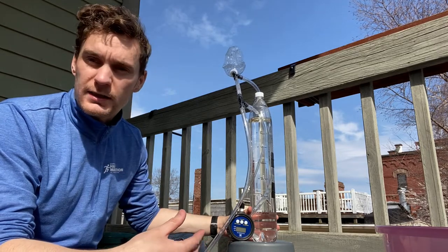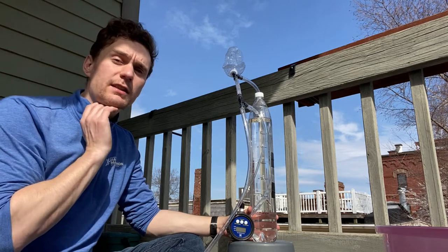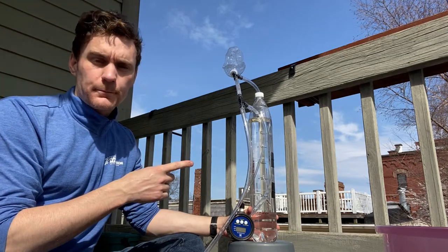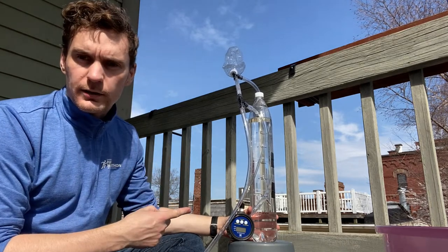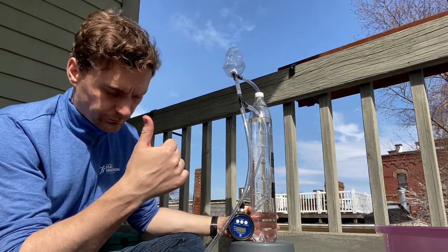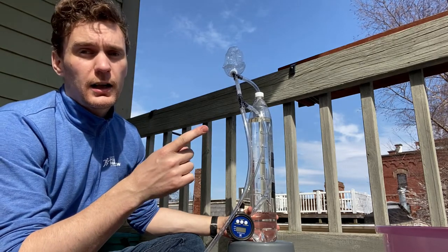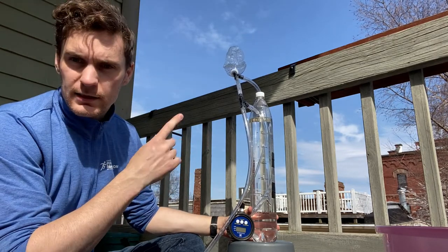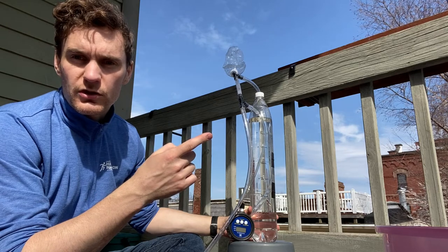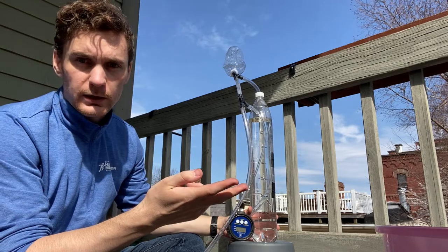These designs are only intended for really short-term use in emergency situations. What I'm showing here is a principle that can be applied to provide pressure regulation and pressure relief, so you never over-pressure. With a slightly different arrangement, it can also be used to provide humidification of the air.